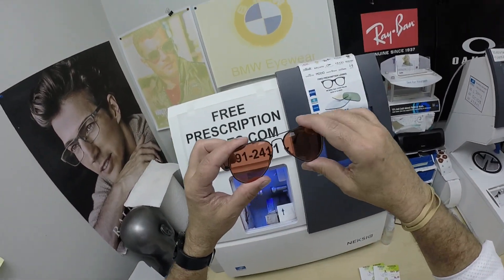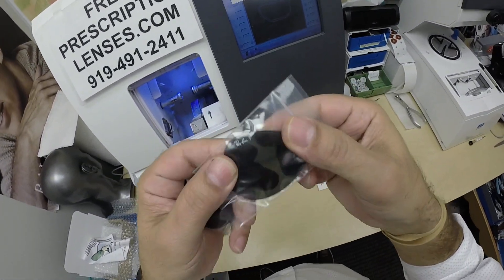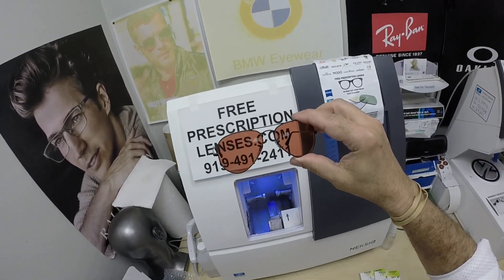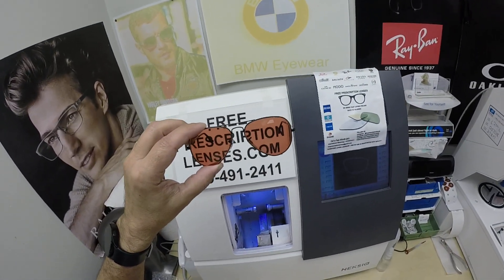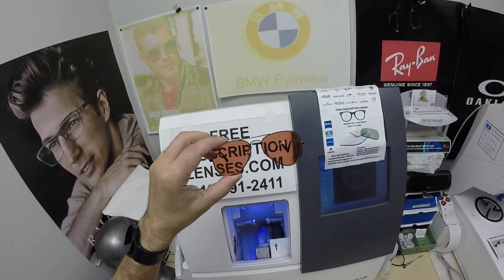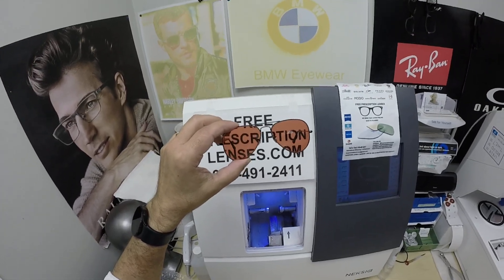When I show you Emma's own Ray-Ban 3025 in size 55 in color black — these had polarized lenses installed. I took those out so I could give her the therapeutic tint FL41 at 80% sunglass dark. Now FL41 is a therapeutic tint for people who have light sensitivity, either caused by migraines, post-concussion, or just general light sensitivity. This is better than just a tint — it has a calming effect on the brain when looked through.